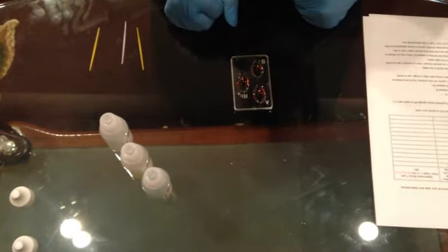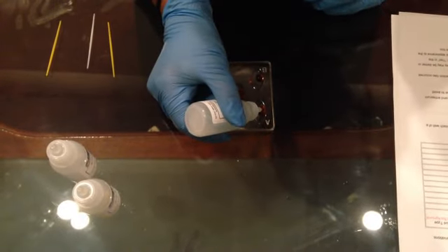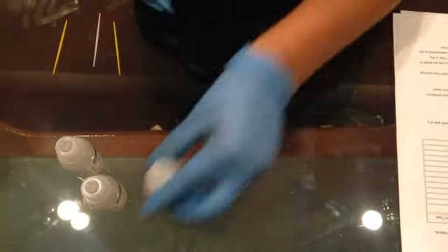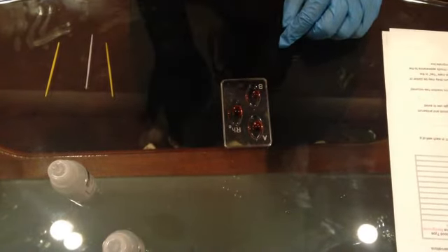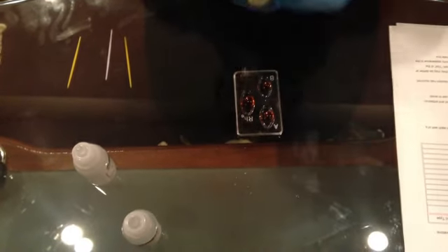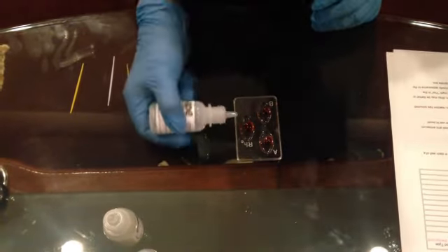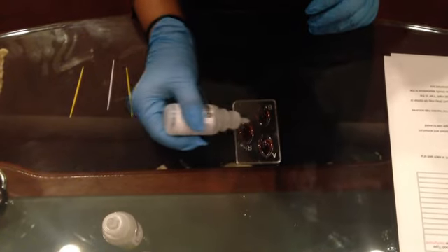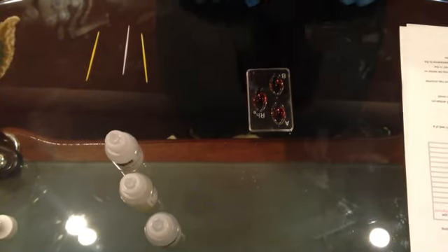So let's begin with dropping anti-A serum to the well labeled A, which is exactly 1 drop. Now we do it for the well labeled B, and now we do the anti-B. And for the last step, we put the RH factor, which is anti-RH serum, to the well labeled RH. So now we will again stir it for 30 seconds and record the reactions.